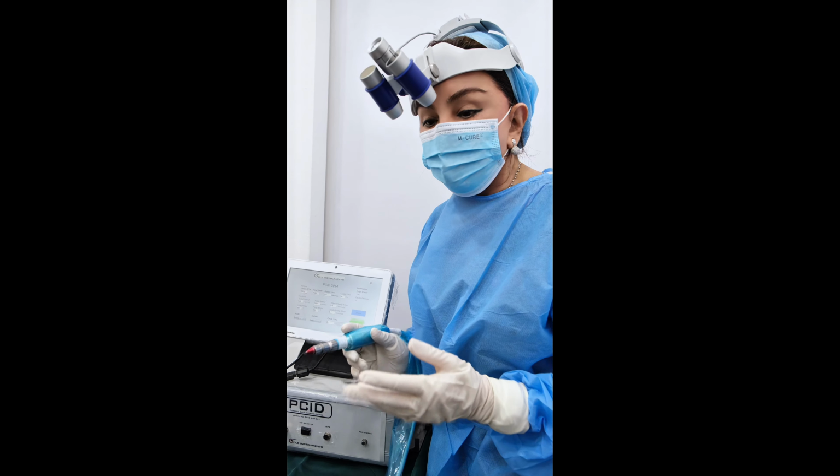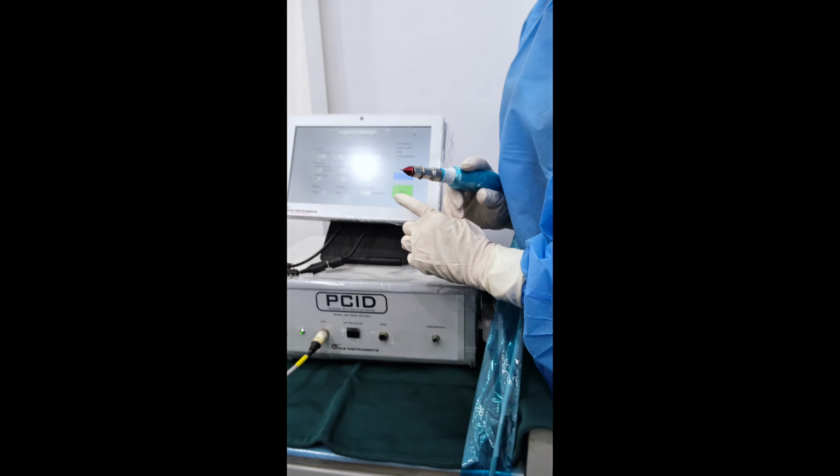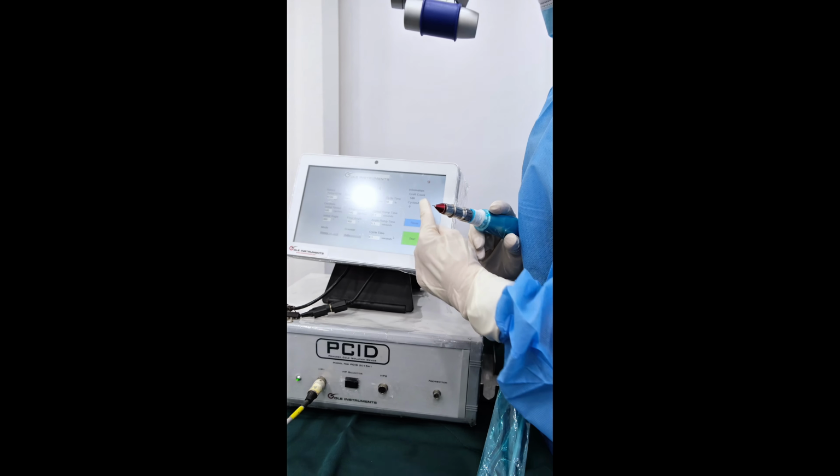In order for this punch to rotate and move, this will be the area that is the pedaling. I'm going to show this moving. If you press here, yes, there's a sound, and you see this moves, so the number has gone up.